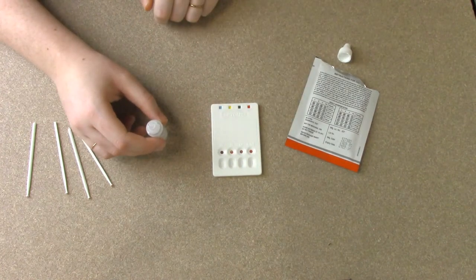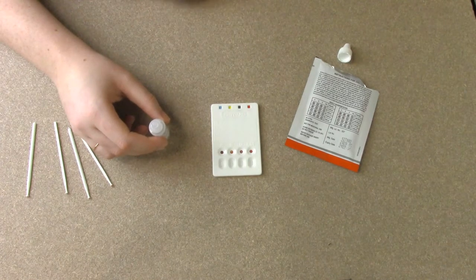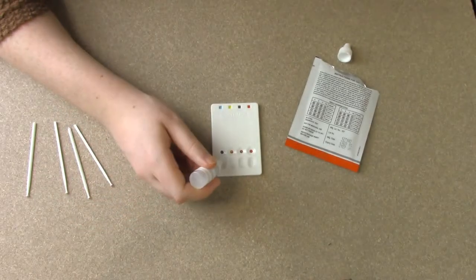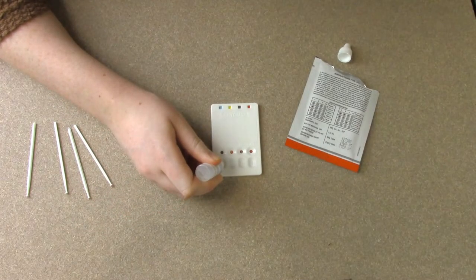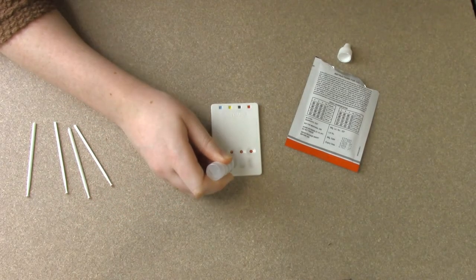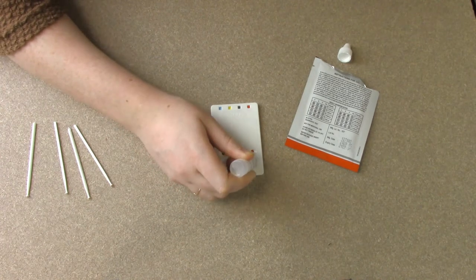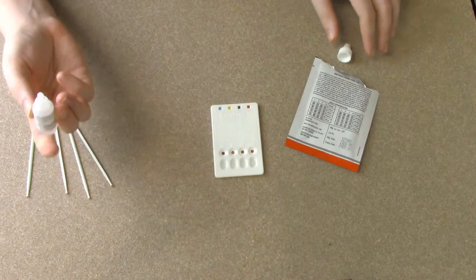Now wait, just a couple more seconds. All right, adding two drops to each.